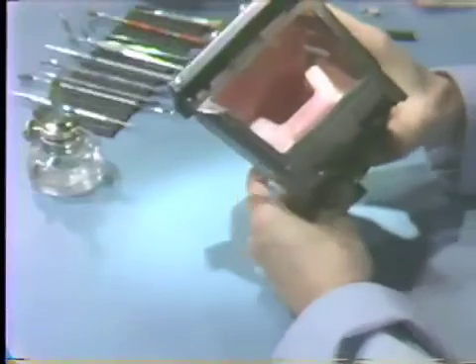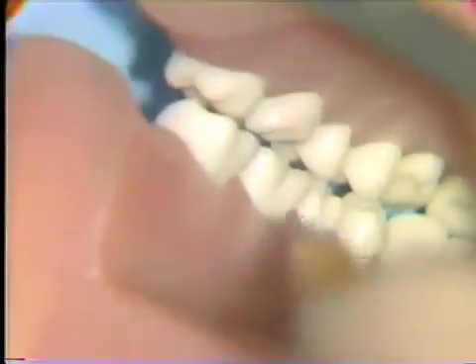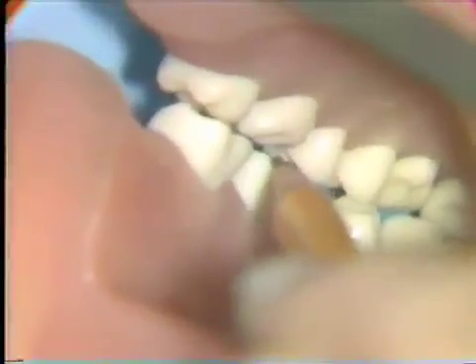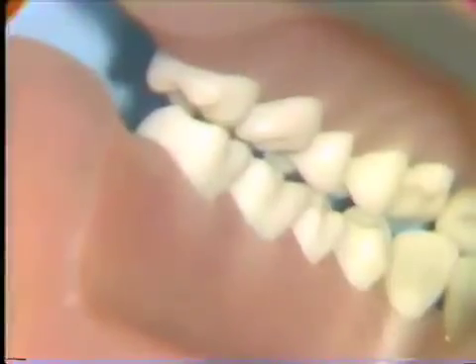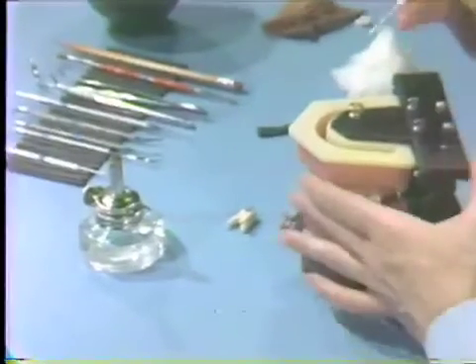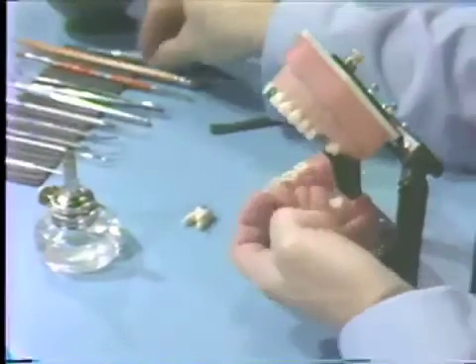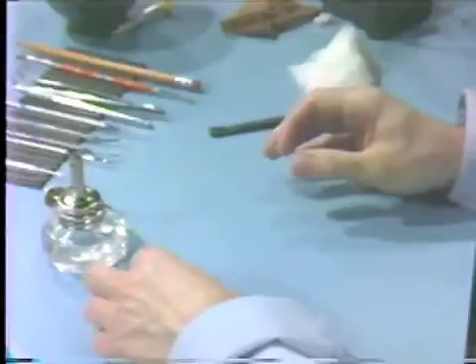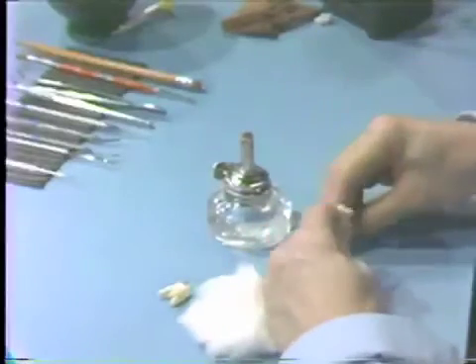Turn your visadont to the lingual as if you were sitting on the tongue. Then you must rebuild the mesial lingual cusp to that centric stop, which is the central fossa of number 19. I would suggest you remove number 14 to place your first increments of wax, but also suggest that you have a maxillary first molar close by so that you can keep referring to it.